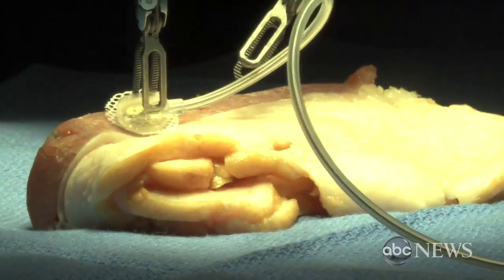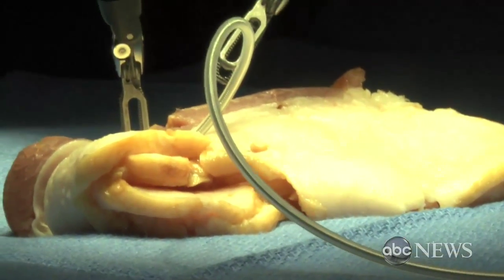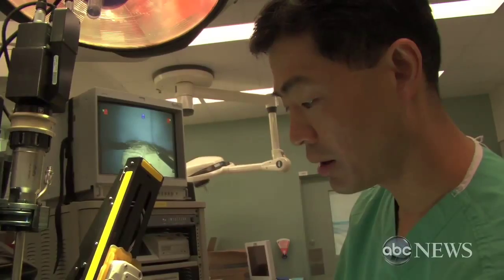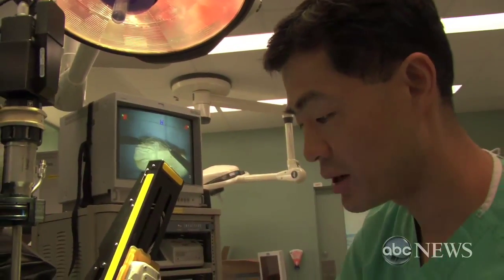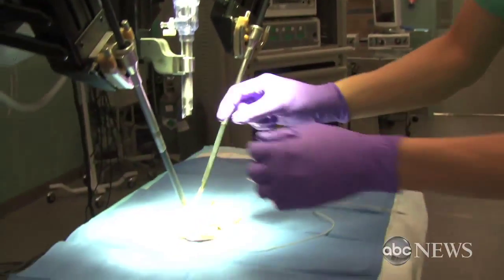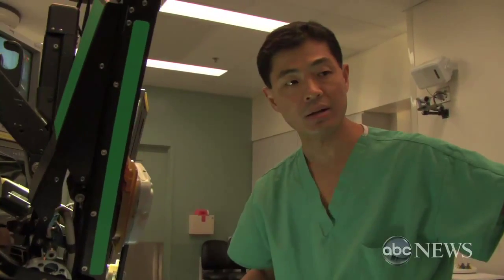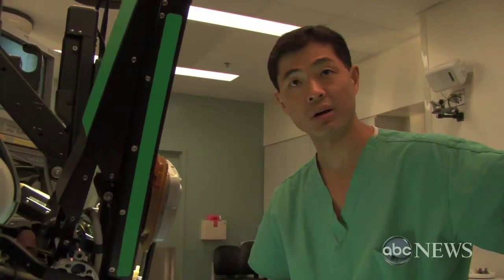Once you see it, just do it. You indent it a little? Yeah, a little bit, not too much. All this stuff is outside the patient — the patient's body is going to be here. These instruments are going to be placed through small holes, no bigger than these instrument shafts. And he can be 10 feet away or 10 miles away.